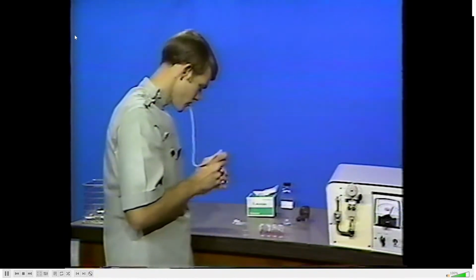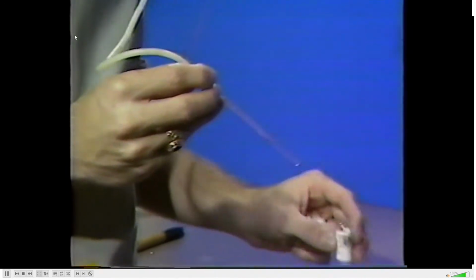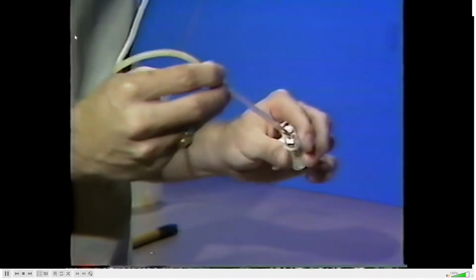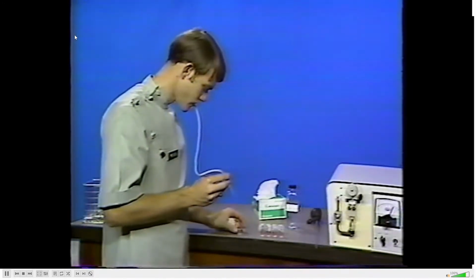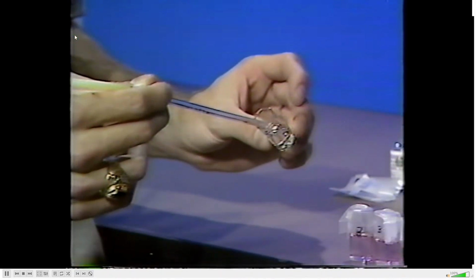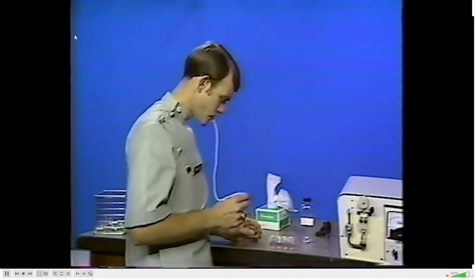Then deliver 1/10 of a milliliter of the 100 milliequivalents per liter chloride standard to each vial with a micropipette. Be sure to rinse the pipette 3 times to the 0.1 milliliter line with the acid diluent.